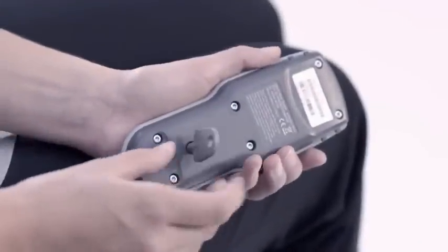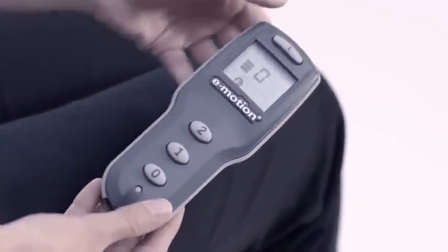Specialist technicians can program the parameters to suit you personally.